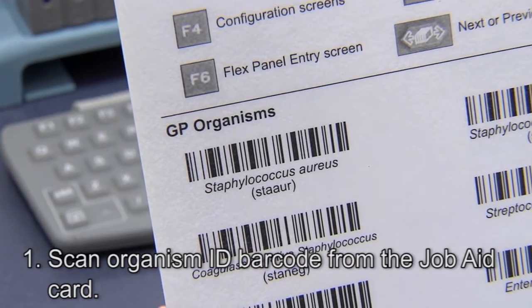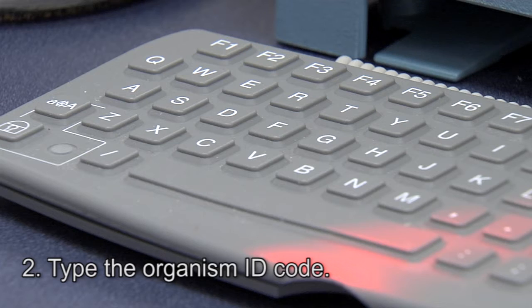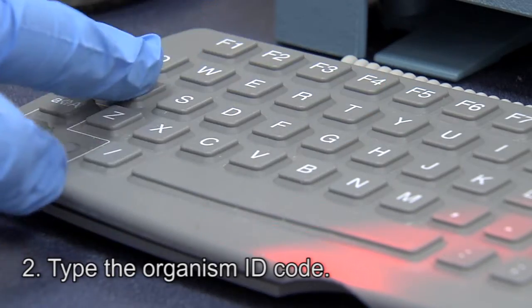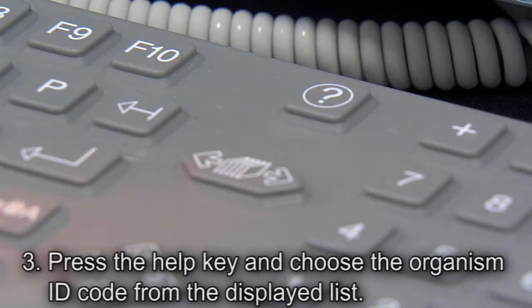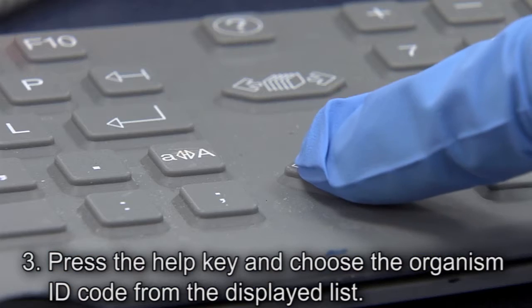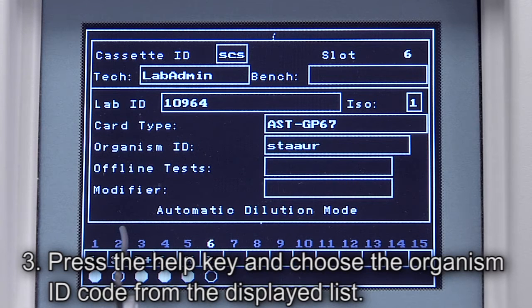First, use the Job Aid card and scan the organism ID barcode. Second, if the organism ID code is known, it can be typed using the keyboard. Third, press the Help key to display a list of organisms. Use the down arrow key to select the organism, then press Enter.